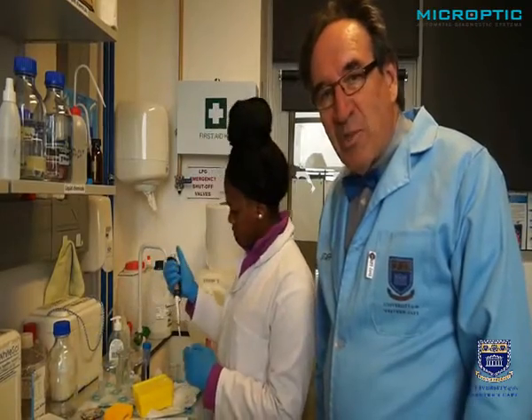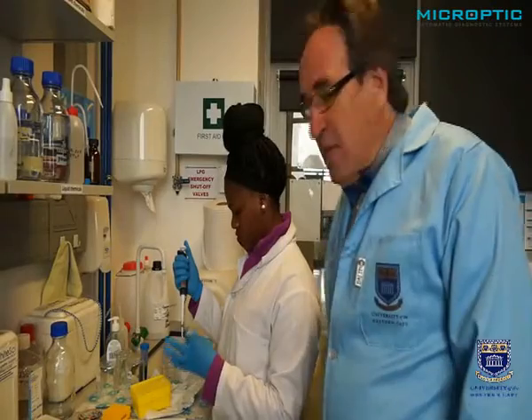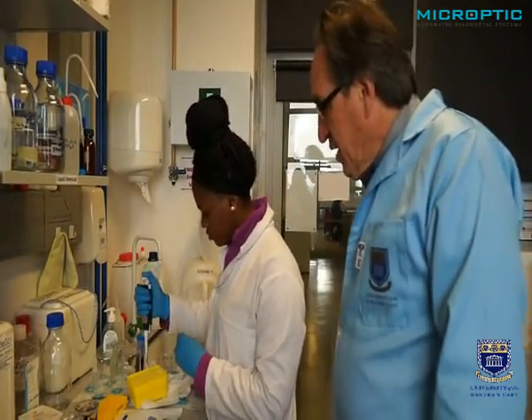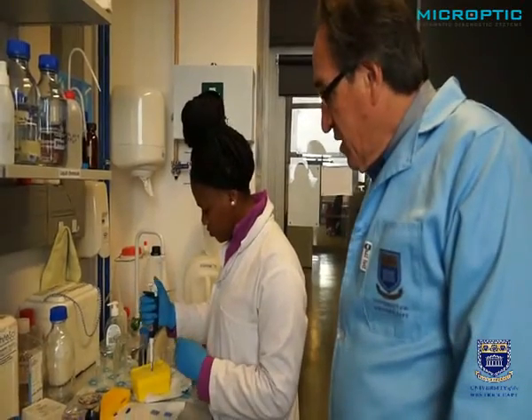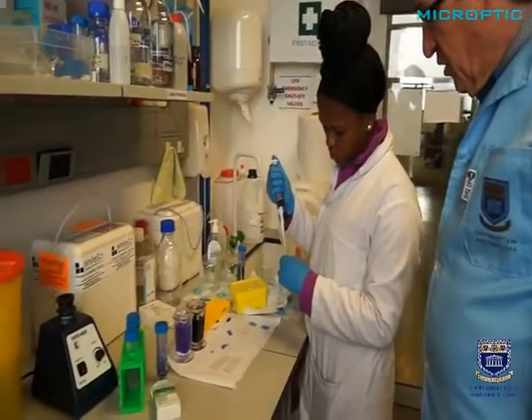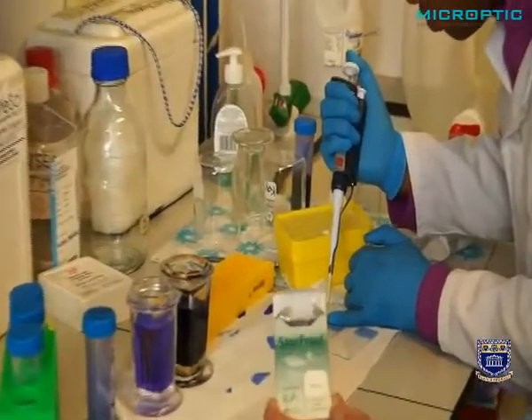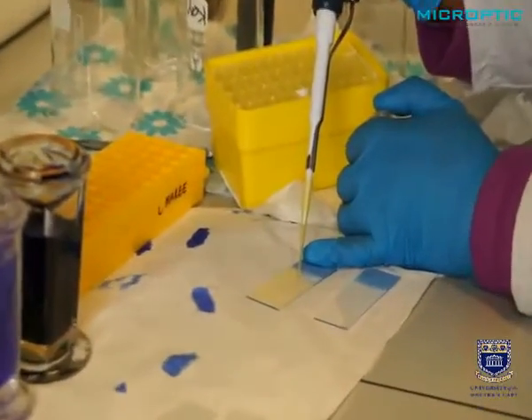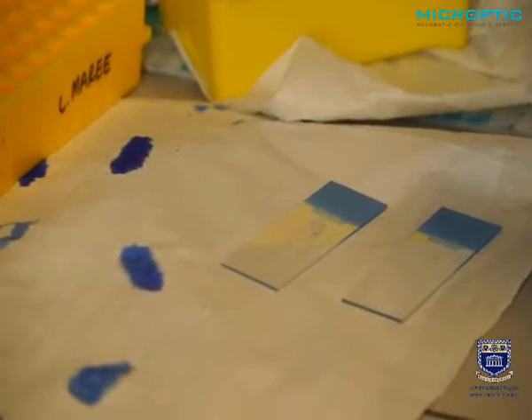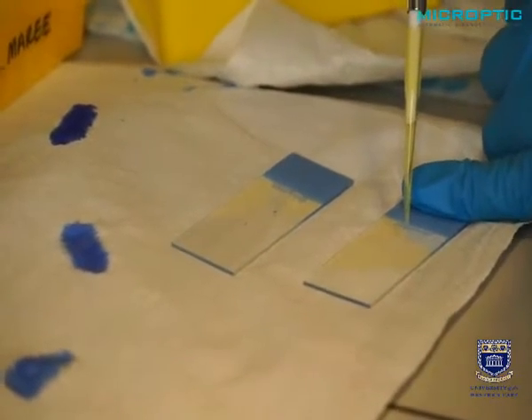Now that we've completed the motility, we're going to show you how to make a proper sperm smear. And Asanelli is going to take 10 microliters of the raw, neat semen, and she's going to put it on the side of a so-called Starfrost slide. These are Starfrost slides. They are electrically treated to adhere more sperm. She's going to put 10 microliters also on a duplicate Starfrost slide.